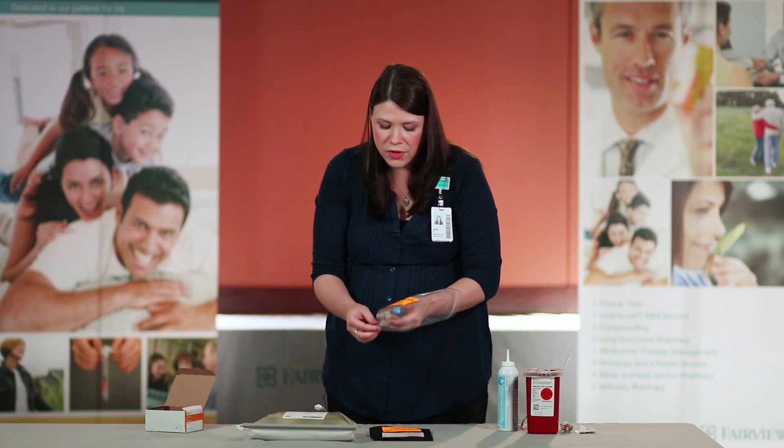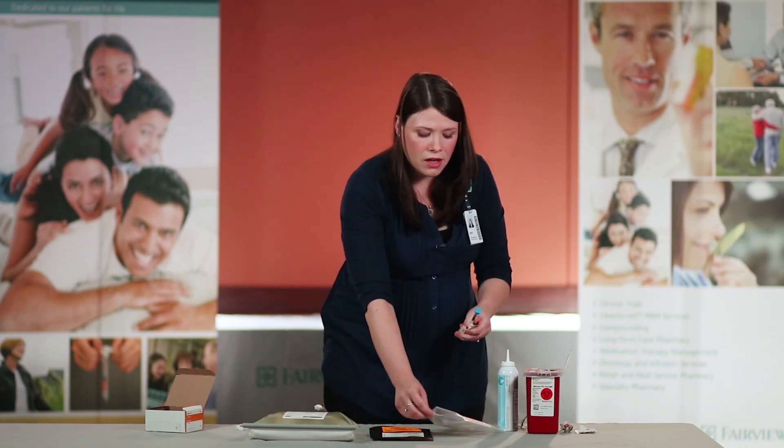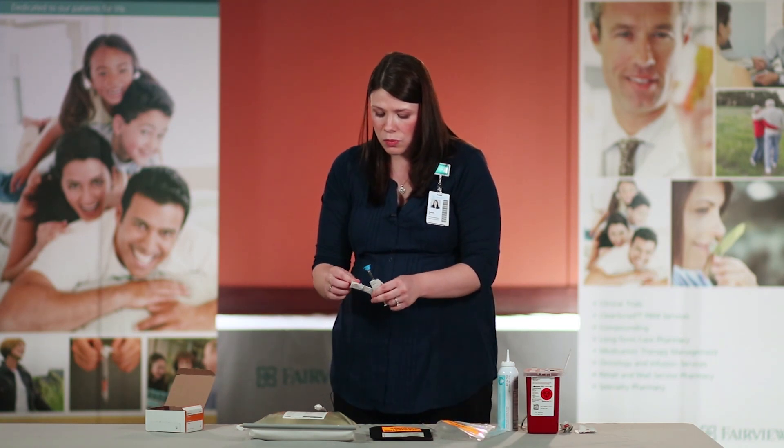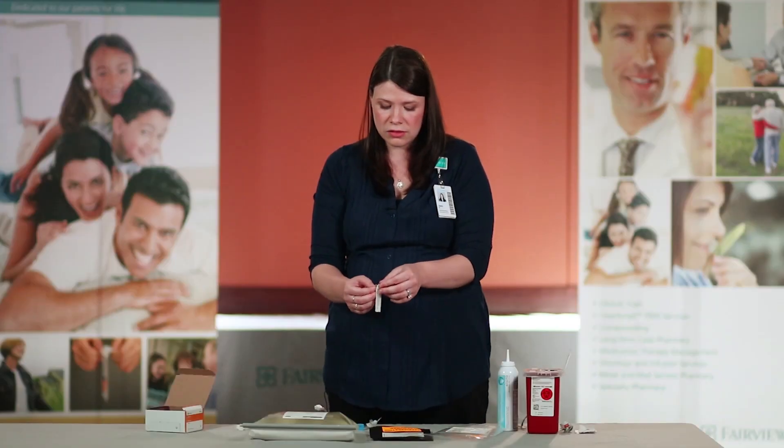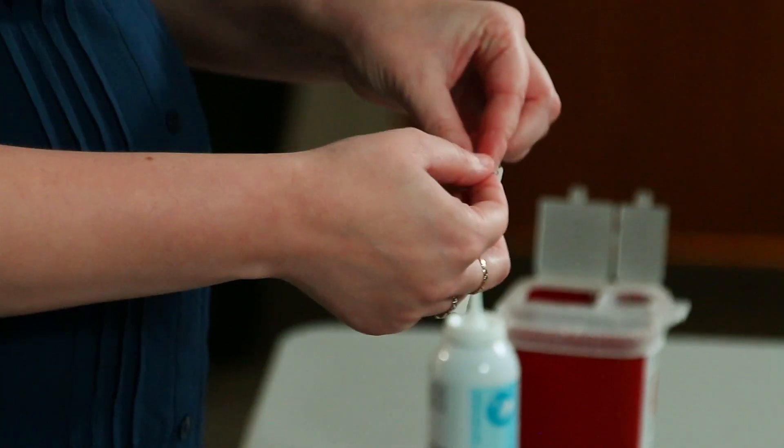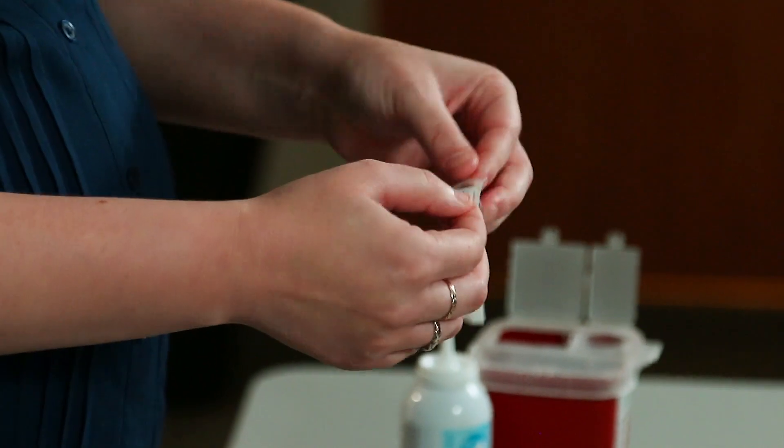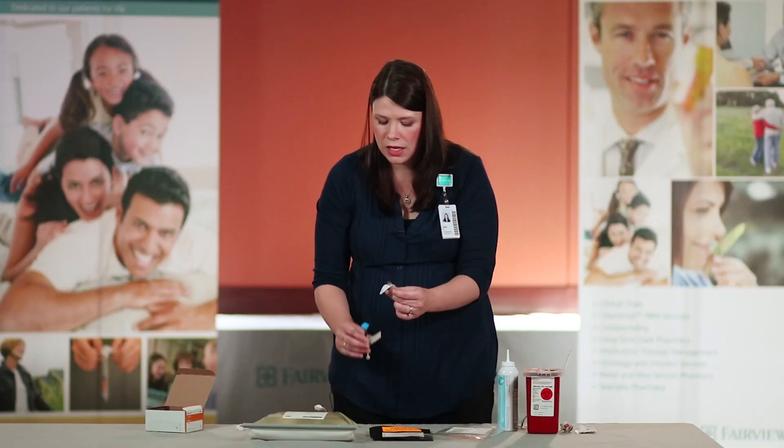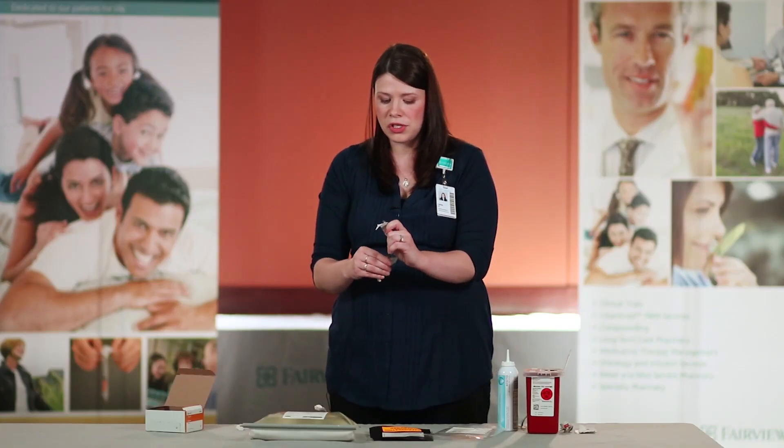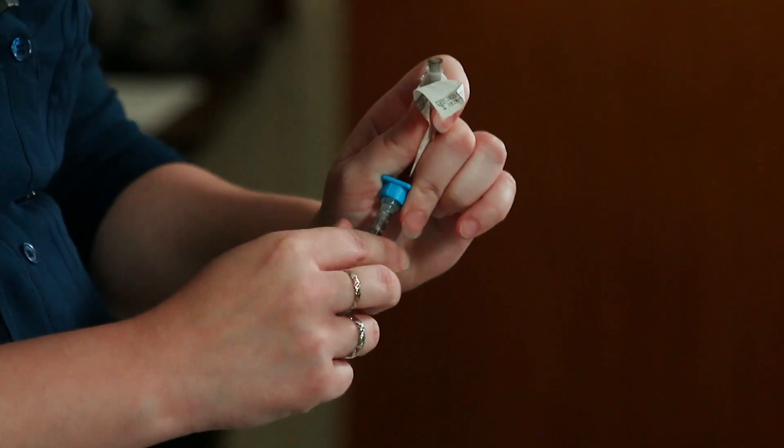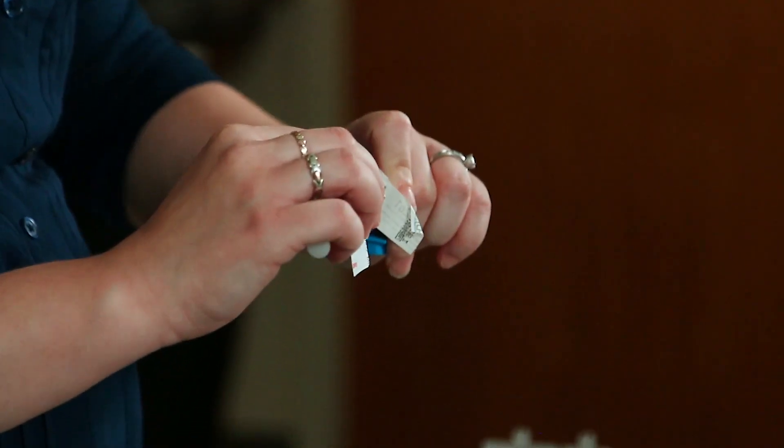Remove your syringe and the needle that comes with your medication. Open the needle ensuring that you do not touch the hub of the needle. Now take your medication and twist on.